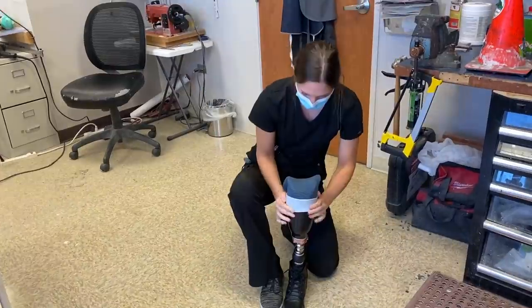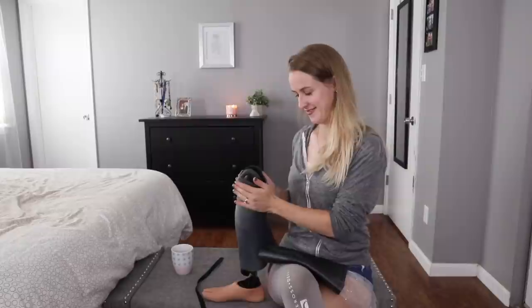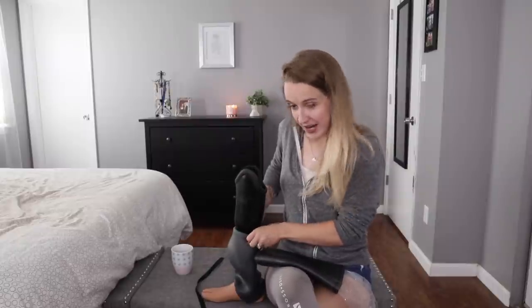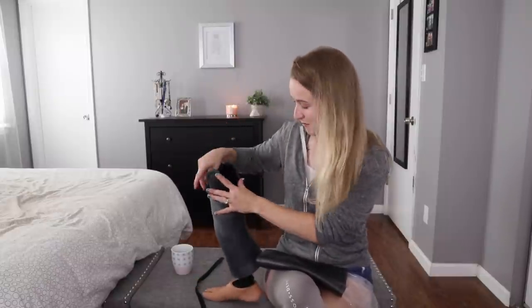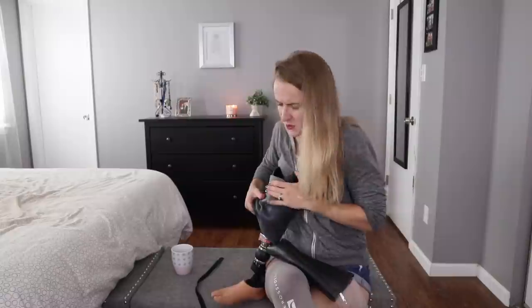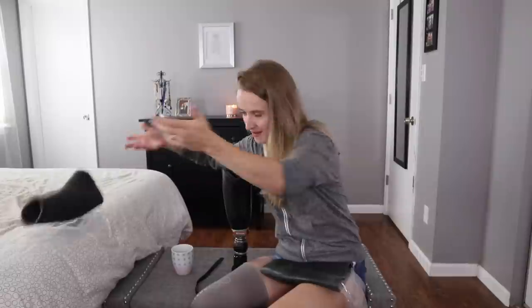What we are going to be doing today is that last demonstrated technique. Let me show you what method I previously preferred — what I used to do to get sleeves on. In all of my brilliance, it seems great in theory — it's technically on there — but to try to get it up and in the right place, especially when it's brand new and much less stretchy, there's always a pain. And when you try to pull it on, it pulls up and it's not in the right place. So we're gonna try the prosthetist-approved method today for this new sleeve.